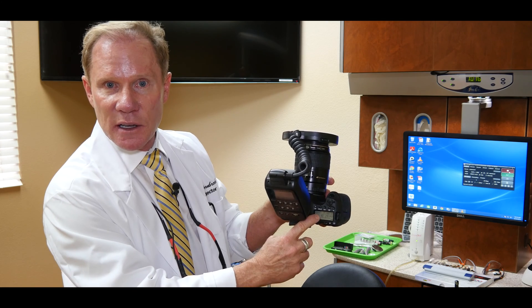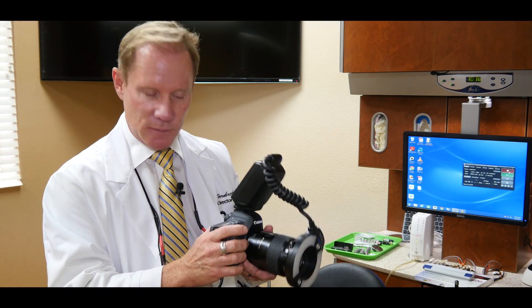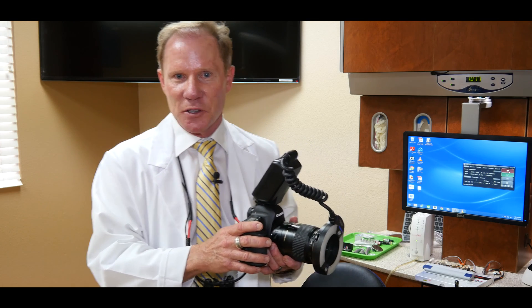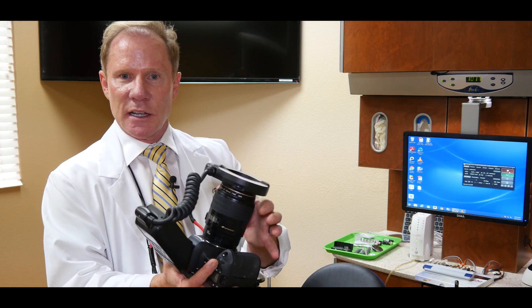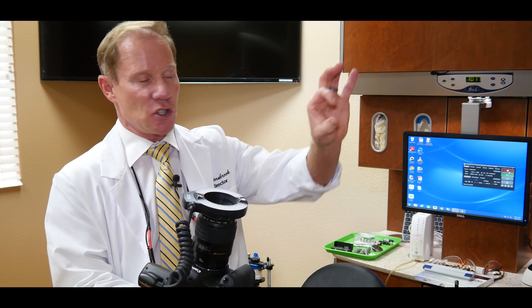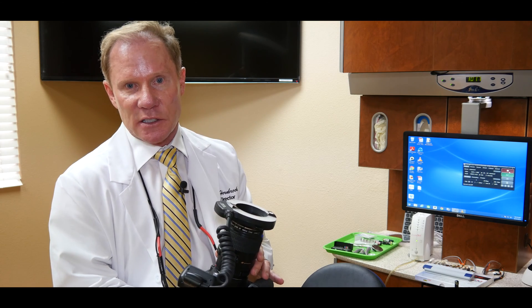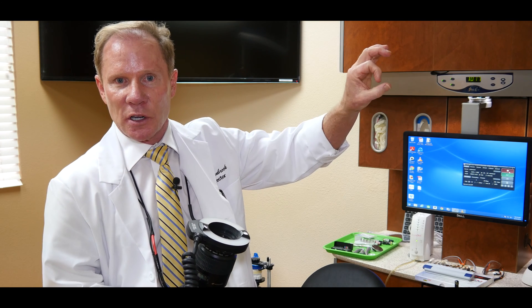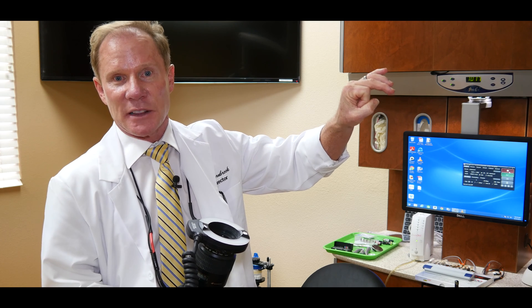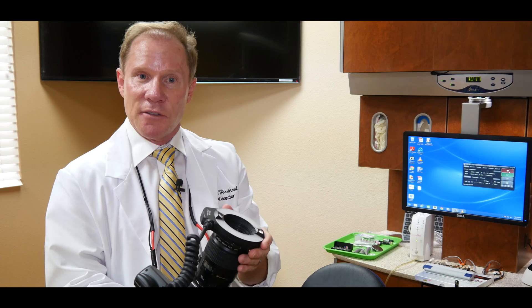We want to make sure it's 60 before we actually take our photo. The next major line item is f-stop. F-stop can be confusing — it correlates to how much light the lens is letting in, or the aperture. The higher the number, the more closed your lens is and the less light comes through, but the higher number will also give you greater depth of field.